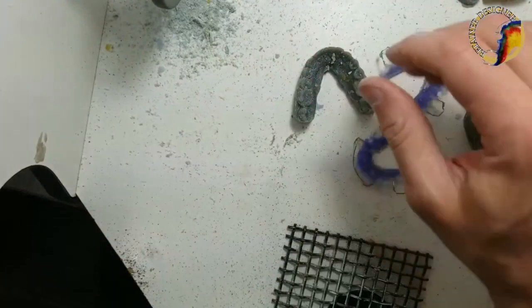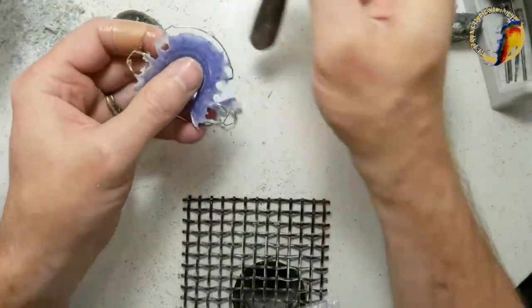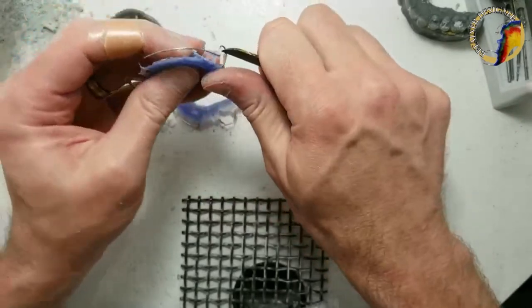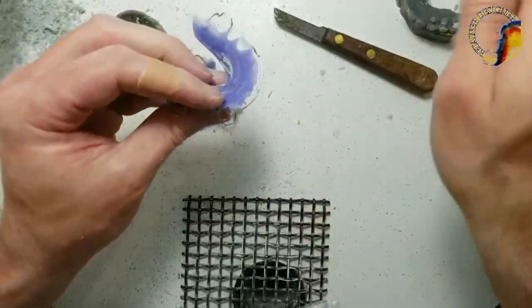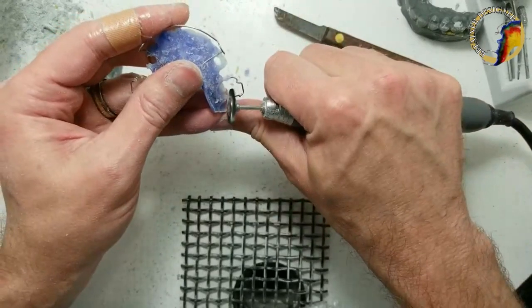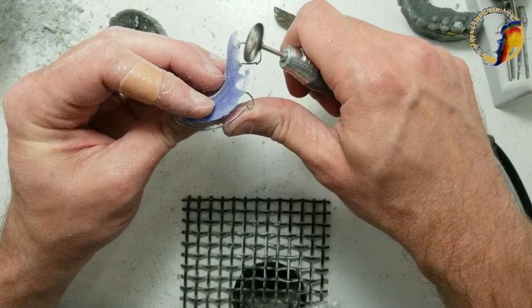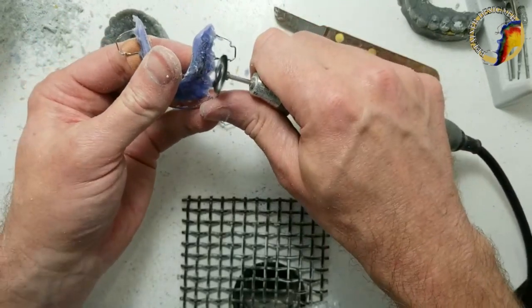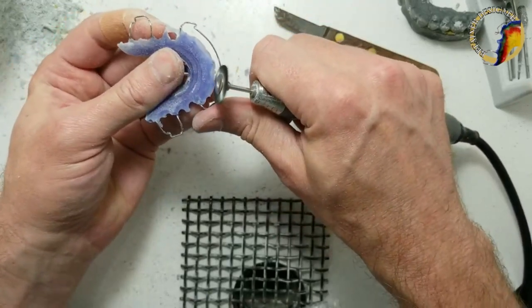I'm going to use that bristle brush again. I like to start with a knife — the sticky wax should just fracture off so you don't get wax in your burrs. I like to use these bristle brushes to clean up around the wires. I go right to where the wire starts going into the acrylic — on the upper, that's into the roof of the mouth. That helps the retainer sit better on the model when you try it on later.